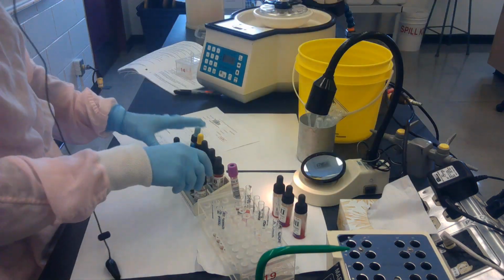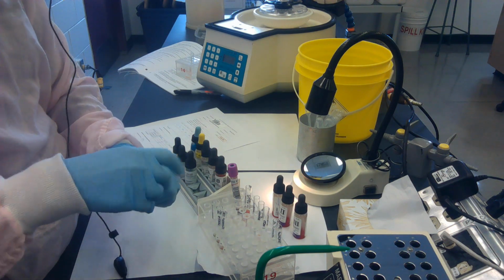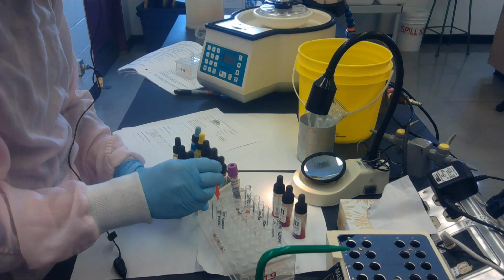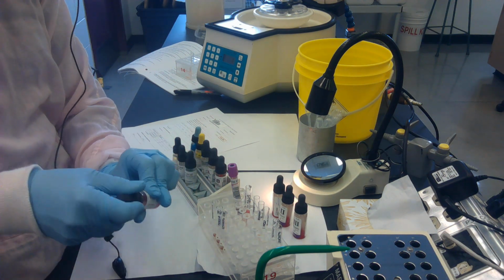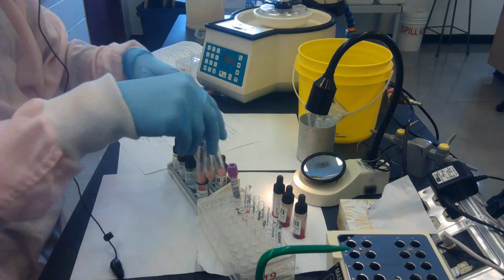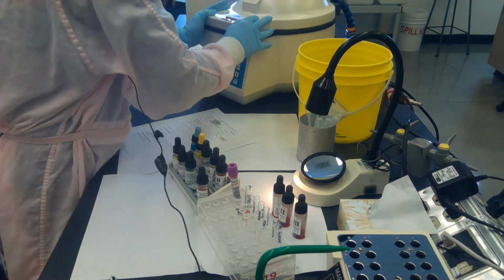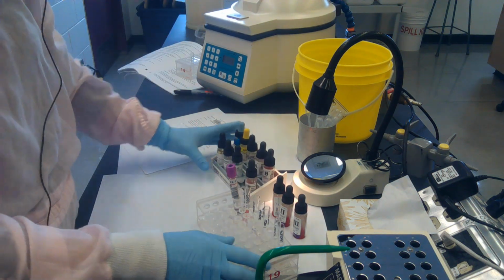The last check in the procedure is to add check cells. So anytime we use anti-human globulin, we always add check cells to ensure that the anti-human globulin was indeed added and remained reactive. So again, it's been added to all negative tubes. Give a little shake, into the centrifuge for a 15-second spin, and we'll read our check cells.